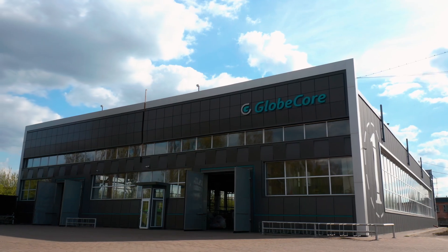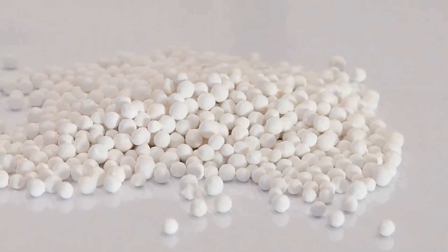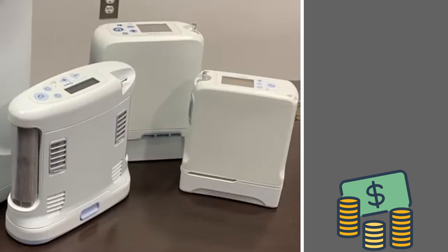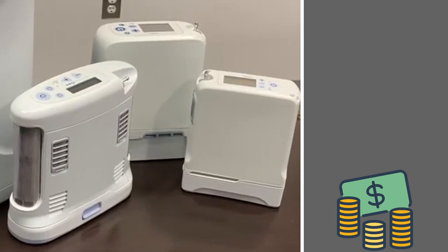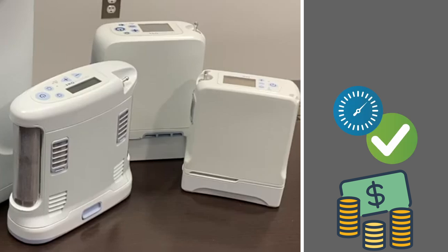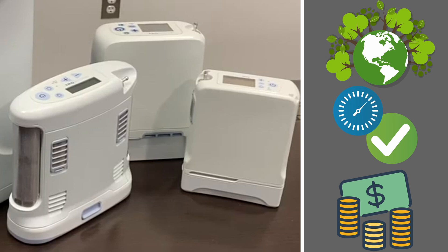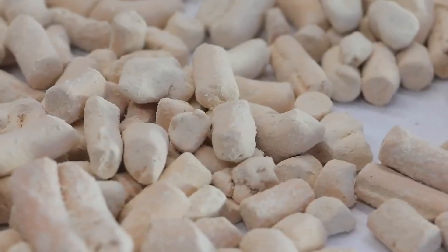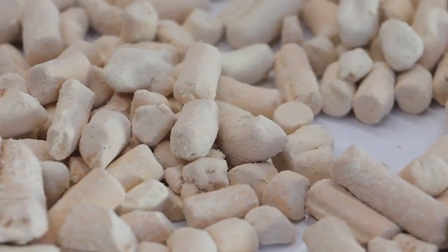The use of GlobeCore zeolite regeneration technology makes it possible to reduce the costs associated with servicing oxygen concentrators by saving money on the purchase of new and disposal of spent zeolite, to enhance the operational reliability of oxygen concentrators, and to mitigate environmental pollution.